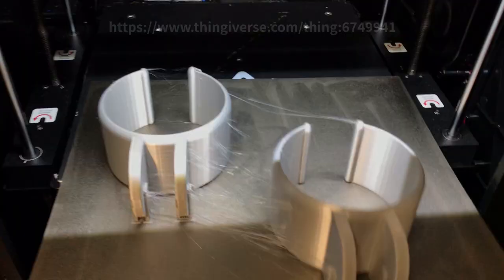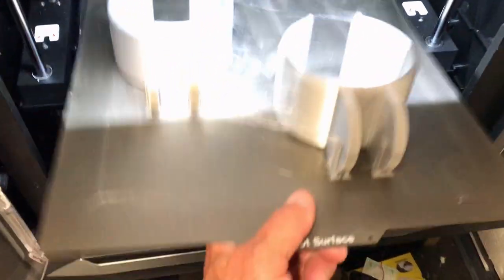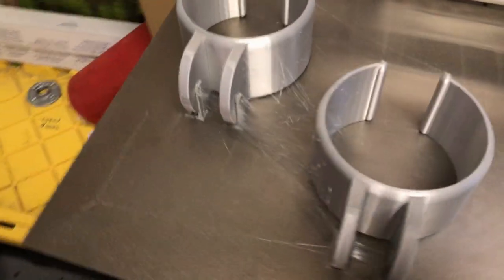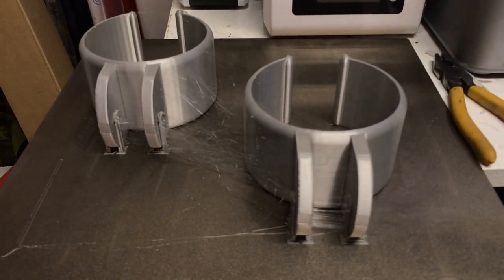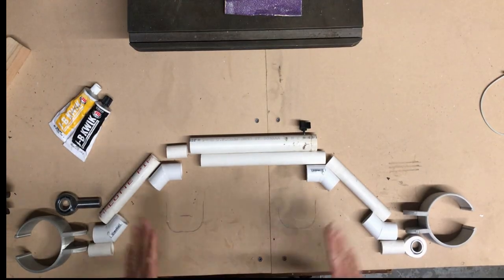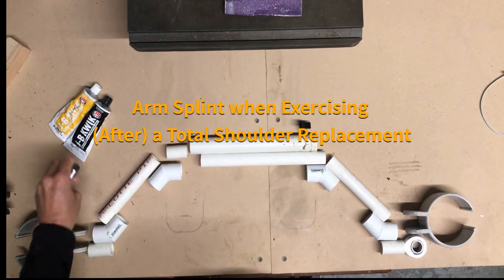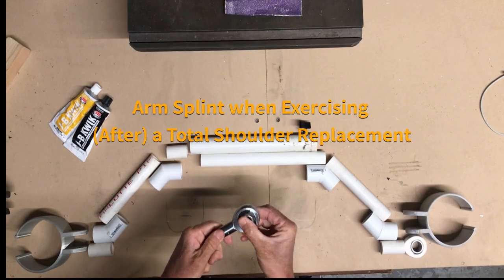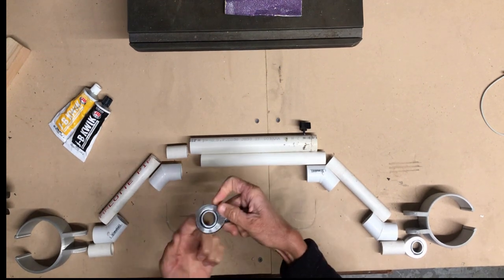It's magnetic so it kind of pops in and out. We've got all the parts and pieces laid out. The part I was waiting on came in — it swivels around inside this rod. This part is usually used for something that goes with the front of the steering rack of the car, probably on the sway bar or something like that.